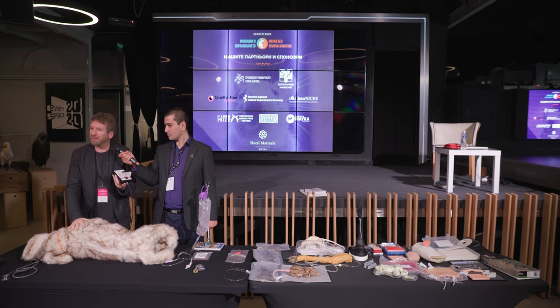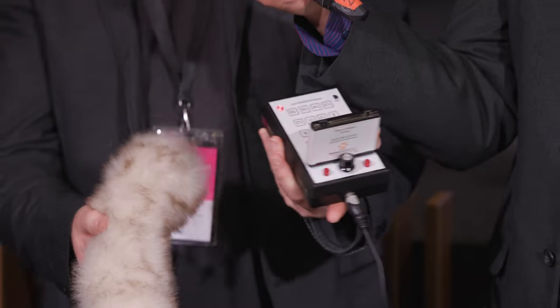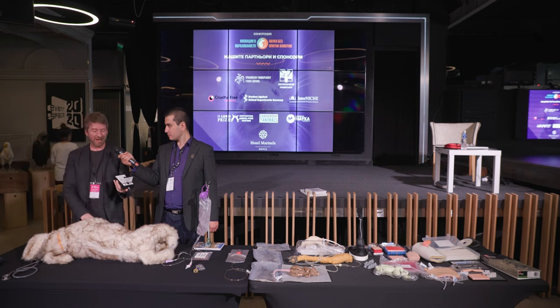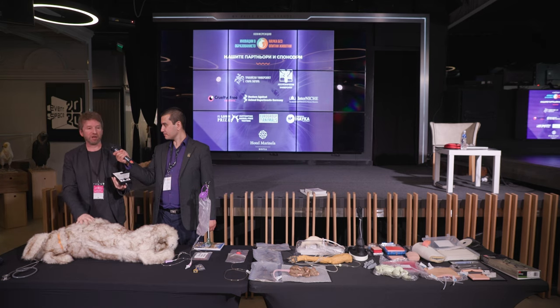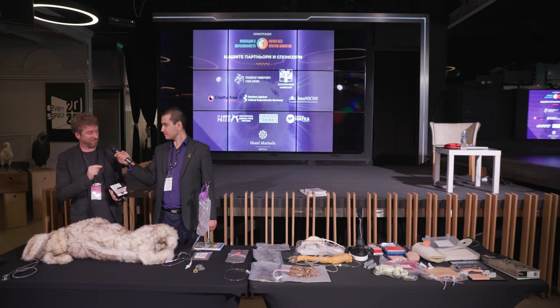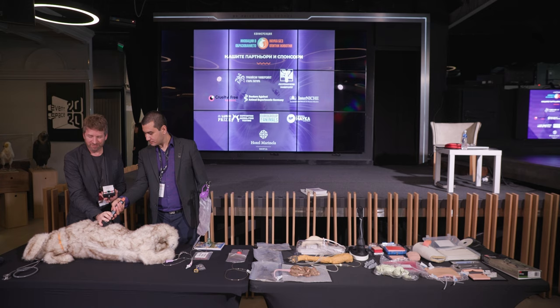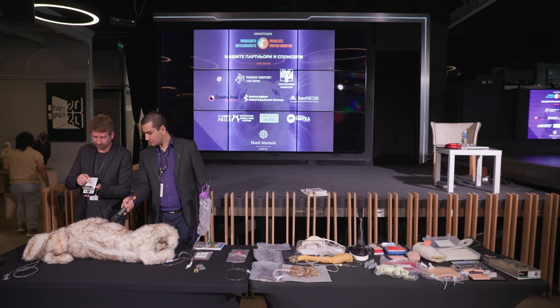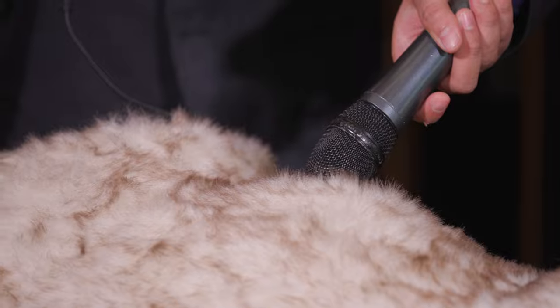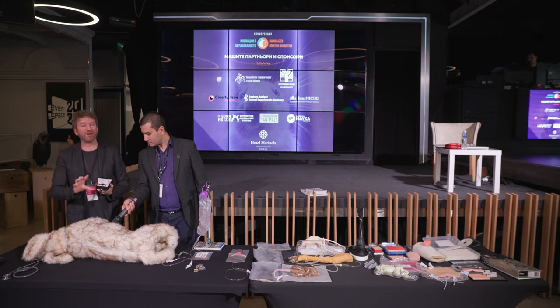The model not only offers replacement for intubation, but you can also give injections and take blood from the neck and the forelimb. You've got those functionalities as potential replacements, plus additional learning opportunities from the breath sounds and the heart sounds. If we put the microphone on the chest, we can hear the breath sounds. These include bronchovesicular, tracheal bronchial, wheezes, and monophonic wheeze — sounds that can help you in the diagnosis of different conditions. You'd need many years of experience in the clinic, but here you have a model to experience this in advance.